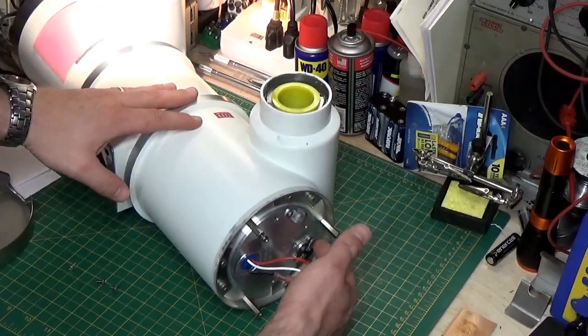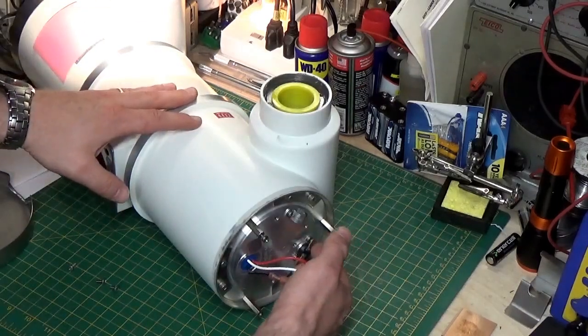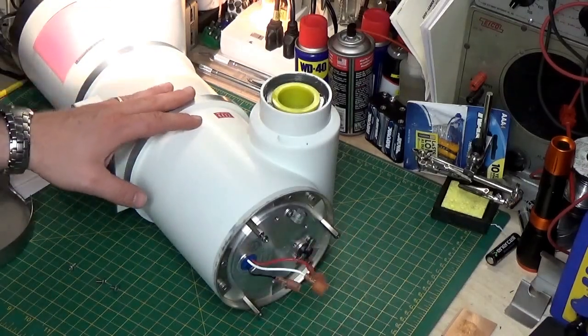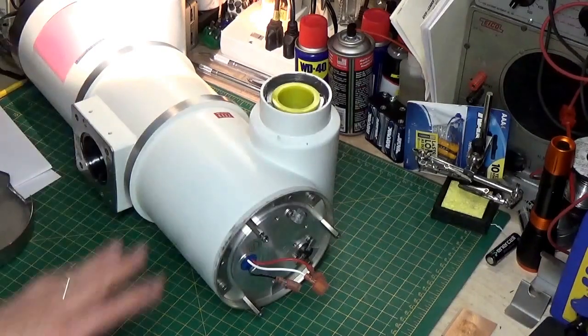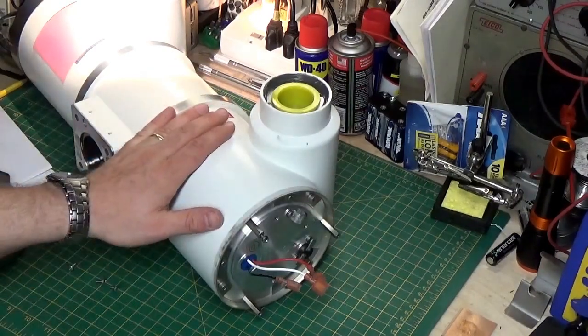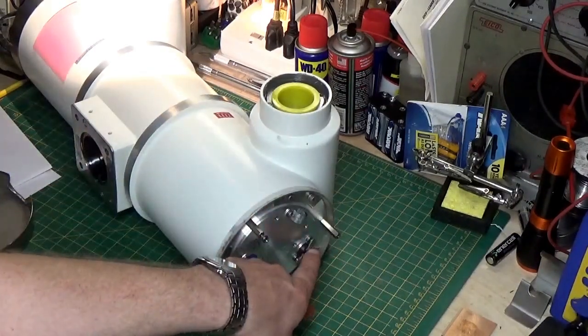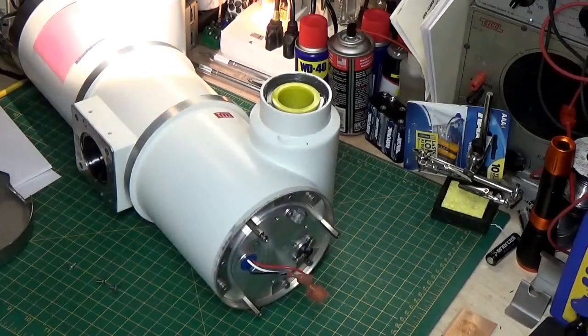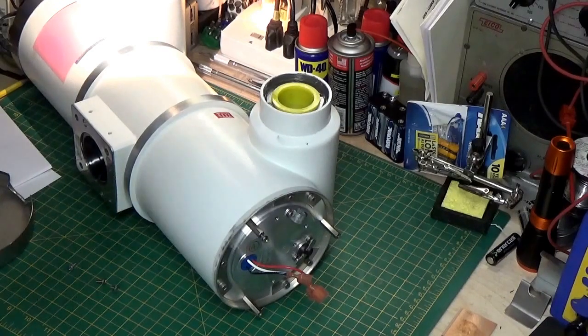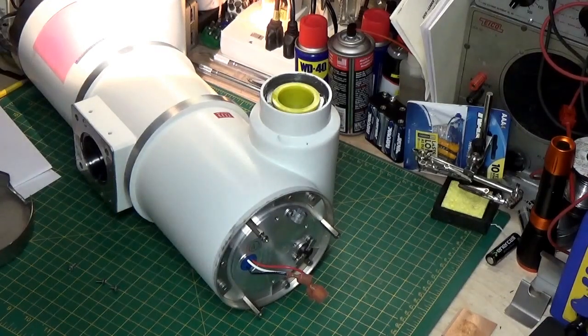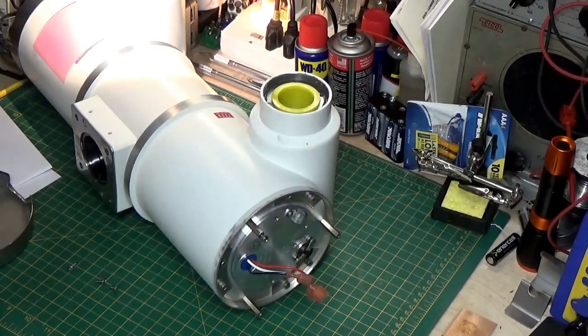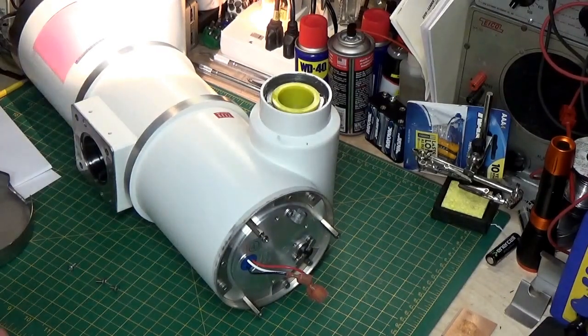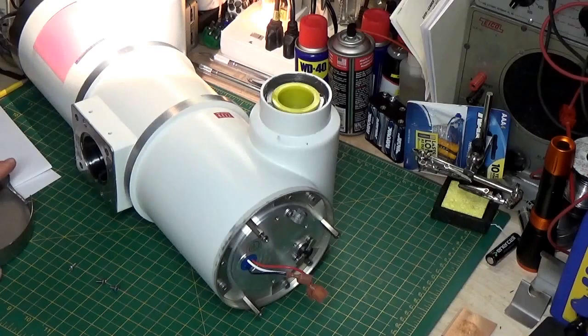Over here, you have a little thermal cutoff switch. That goes down to the x-ray machine. If this gets too hot, this opens up, and it prevents the x-ray machine from energizing. That's what it's in there for. It's another safety that they have in there.